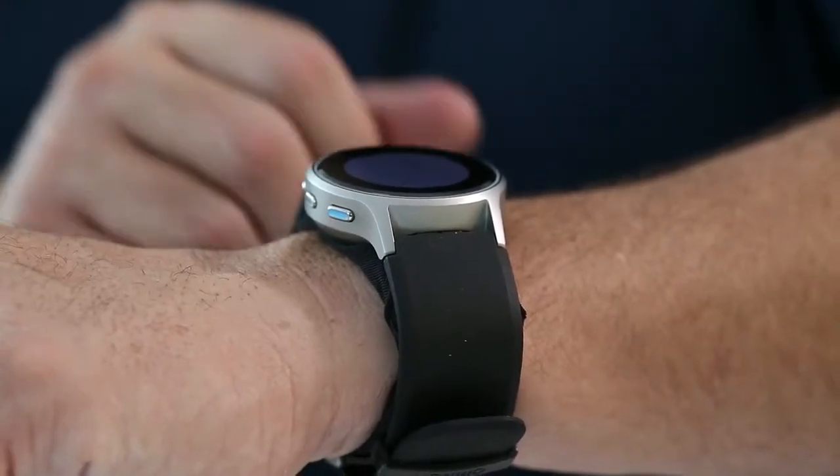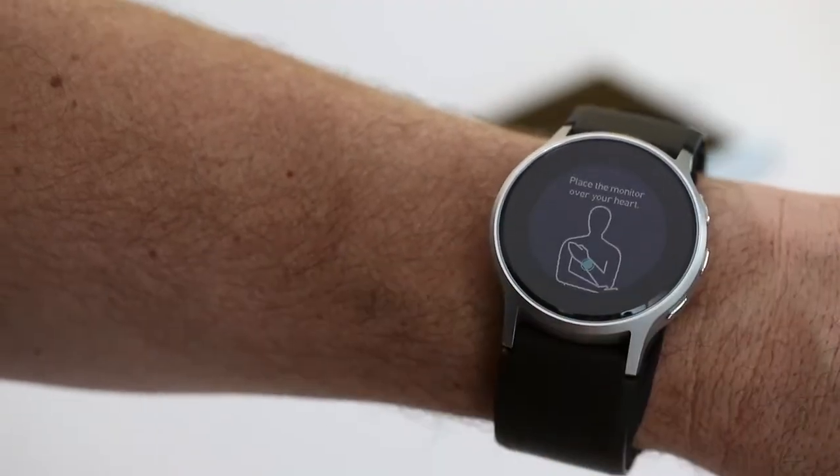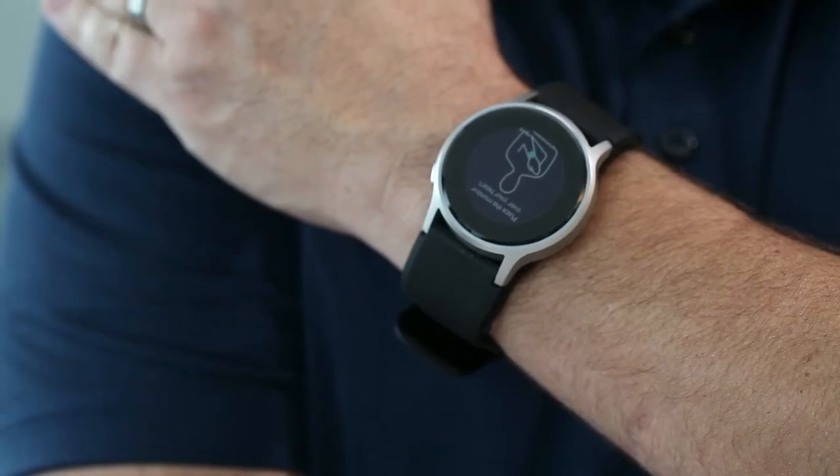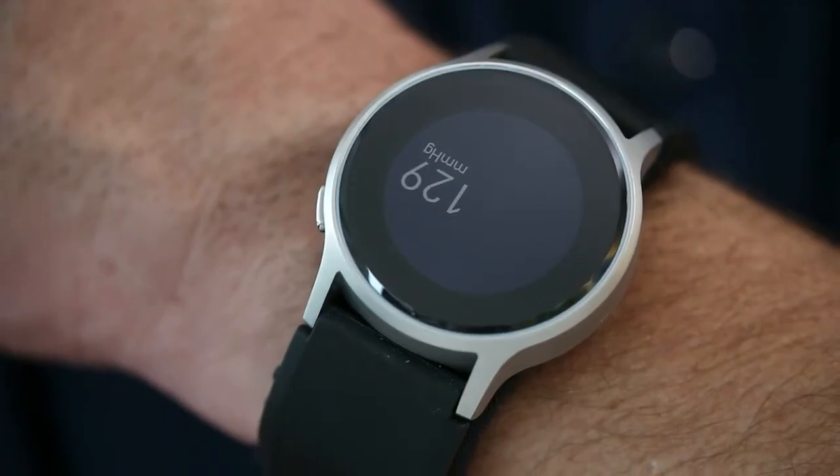After following these steps, press the start button on the side of the watch to begin measurement. Once the posture screen appears, raise or lower your wrist until it is at heart level. After approximately two seconds, the monitor will start a measurement and the cuff will inflate.